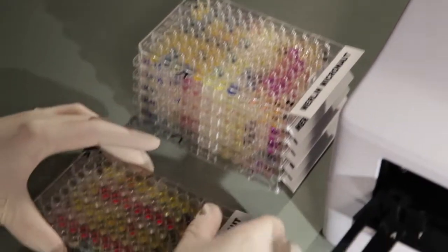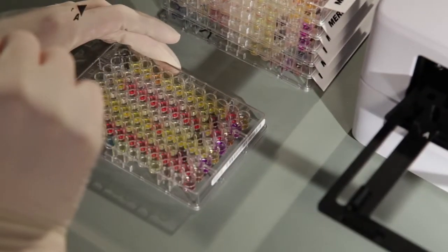The continuing development of our Micronaut systems improves their performance as well as the workflow.